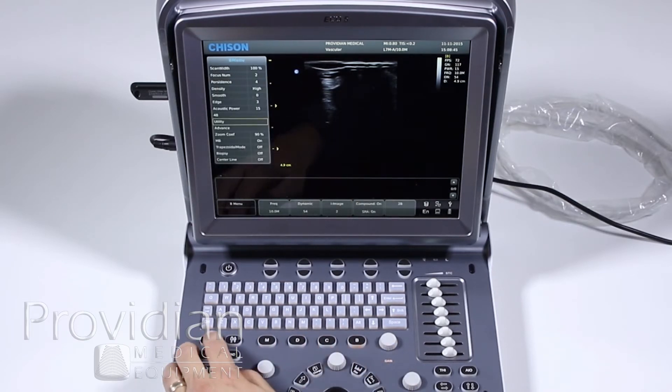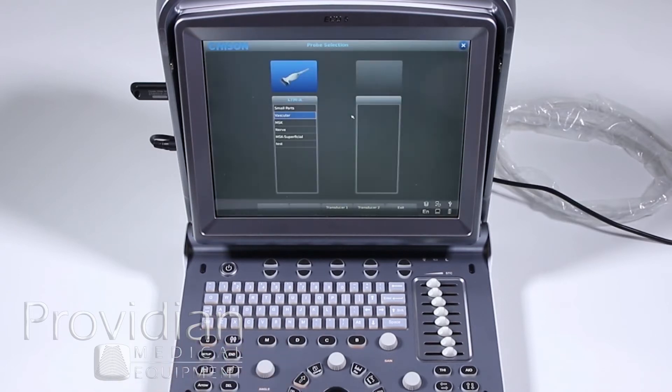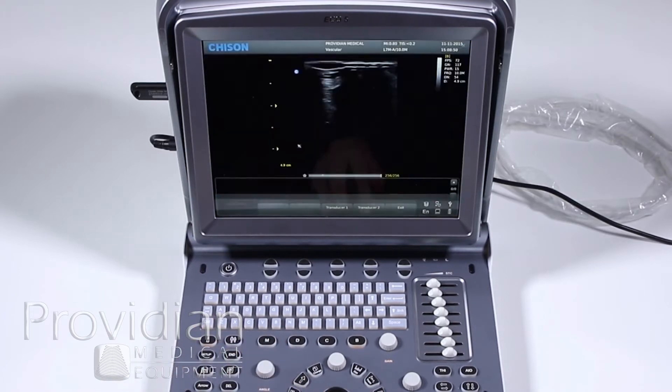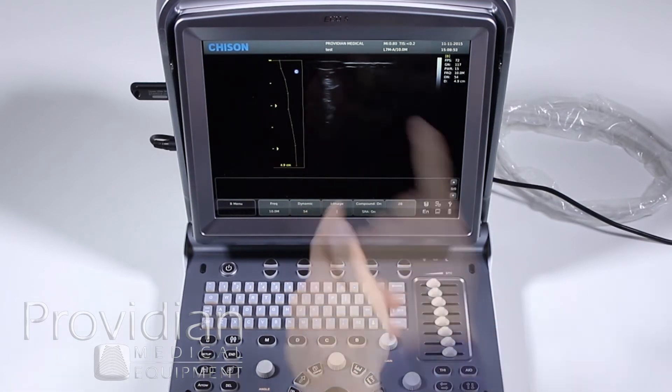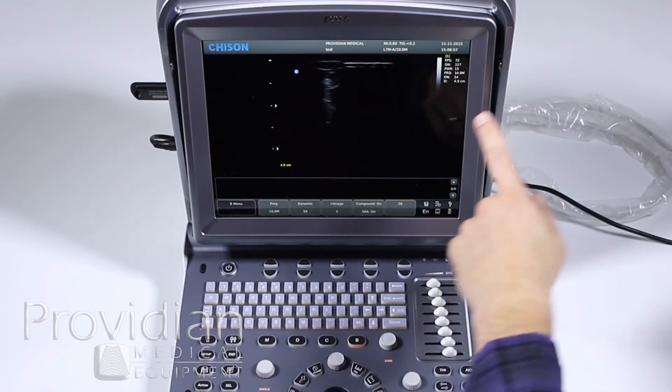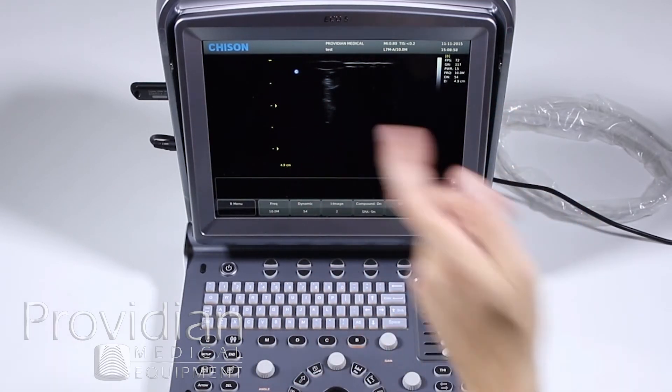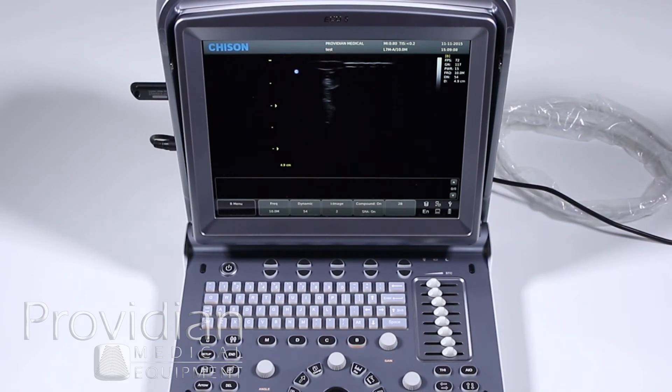I'm going to go back, exit this, go back to the probe screen and here it goes. So each time I boot it up, if I want those special presets, I hit test and it has my custom presets with the depth set, all those different changes that I made to the system. So now you won't have to make those changes every time and the image will be exactly as how you like it each time you turn on the machine.